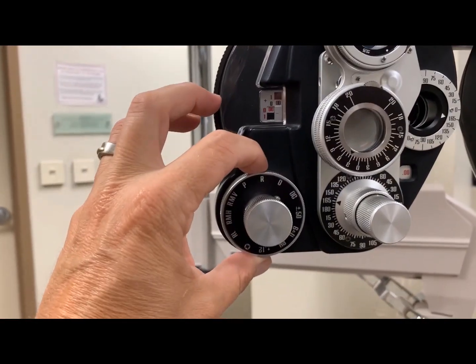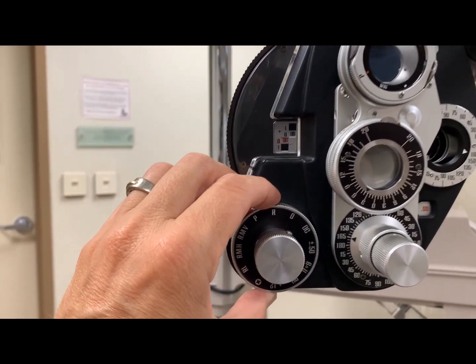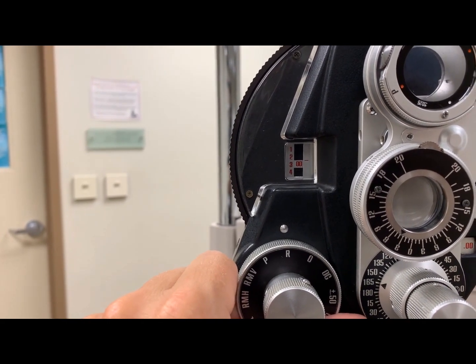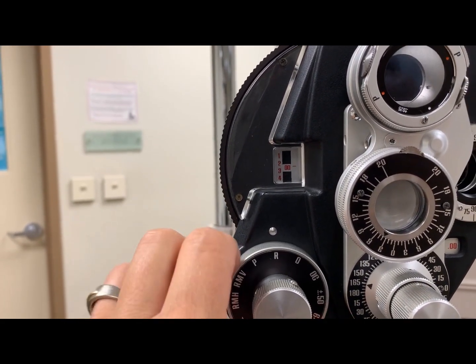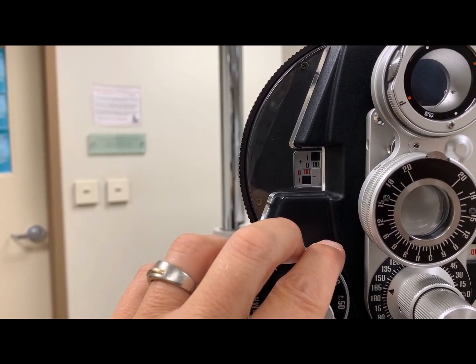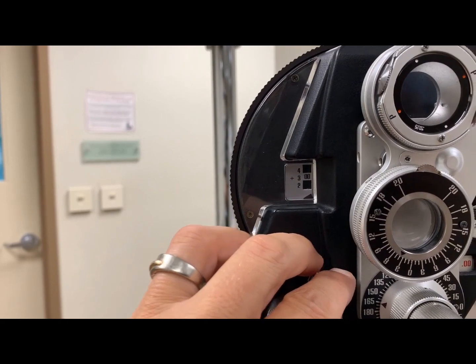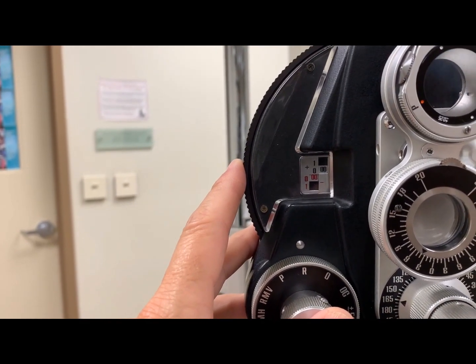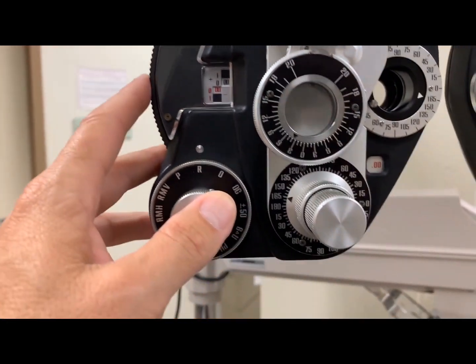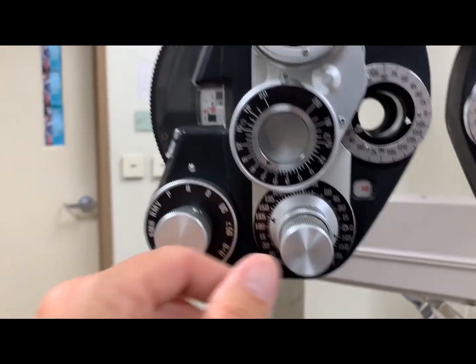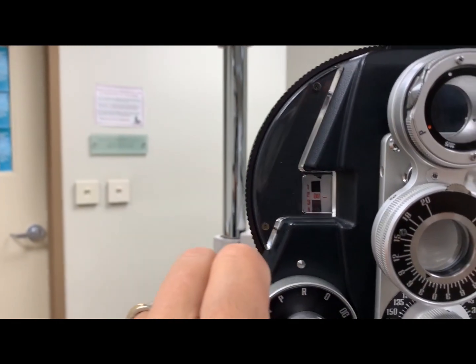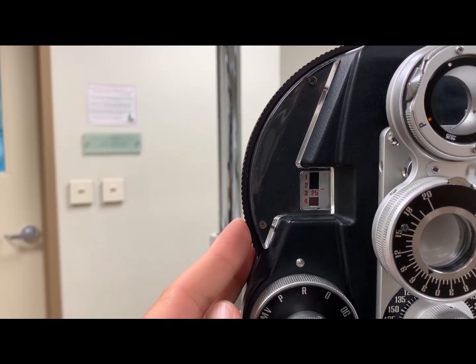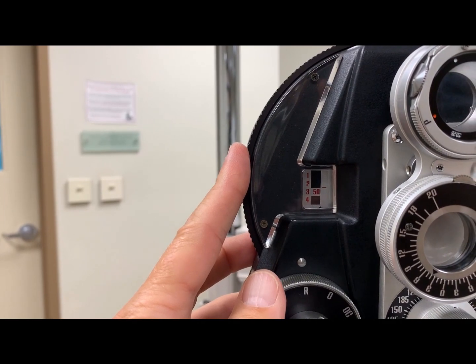By adjusting the wheel around the outside of the knob, you will make a three diopter change in spherical power. Rotating counterclockwise will give you three diopters of minus. Rotating clockwise will give you three diopters of plus. To put, let's put 3.5 diopters of myopia with a half diopter of cylinder into the phoropter axis 180. We'll start with putting three diopters of minus. Then we'll adjust in quarter steps by using the wheel on the side. Now we are at 3.50 spherical.